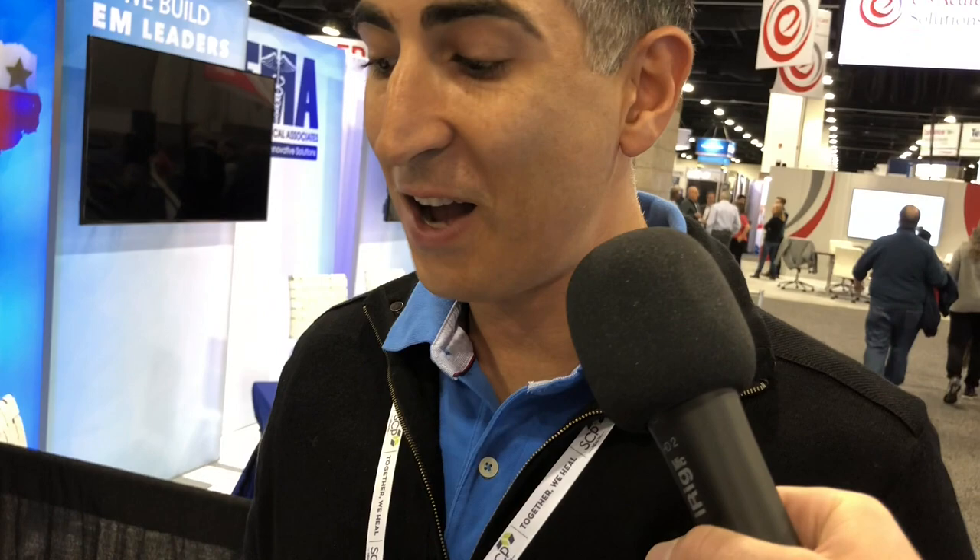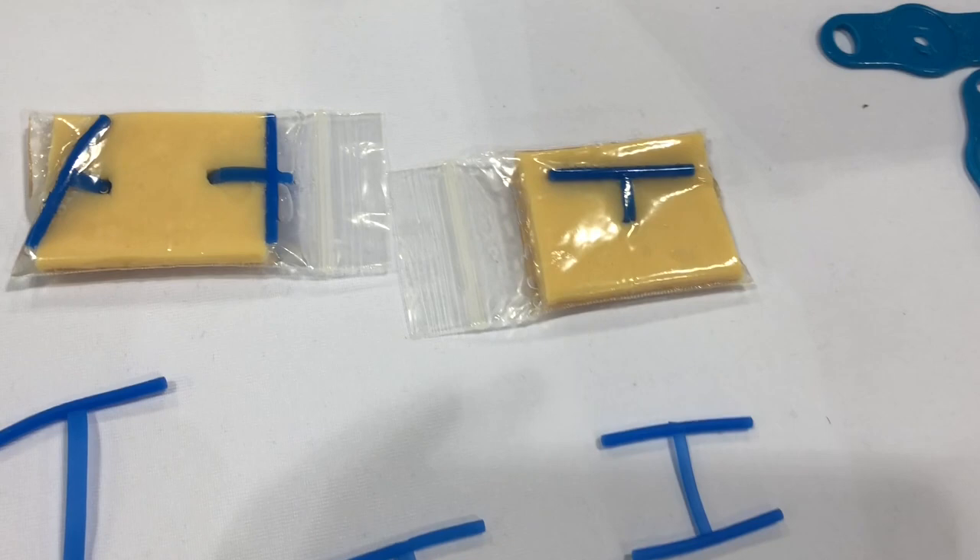But I wanted it to be more versatile, with more sizes. I talked to some folks and ultimately came up with this ladder-type design to increase the versatility, make it so that you can have various sizes, use it in one or two incisions — just made to be much more comfortable than packing, but more versatile and easier to use than the loop drain method.